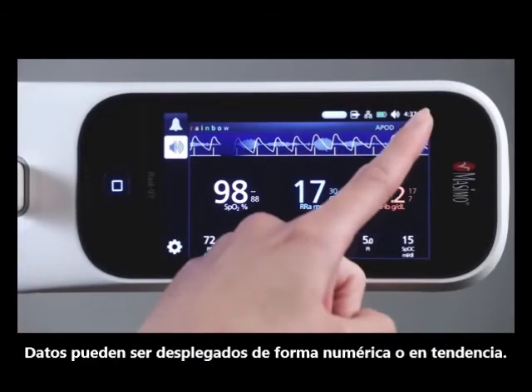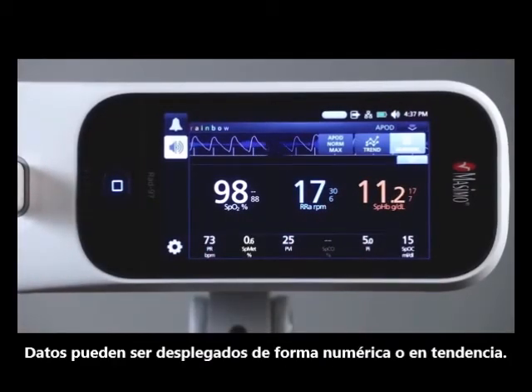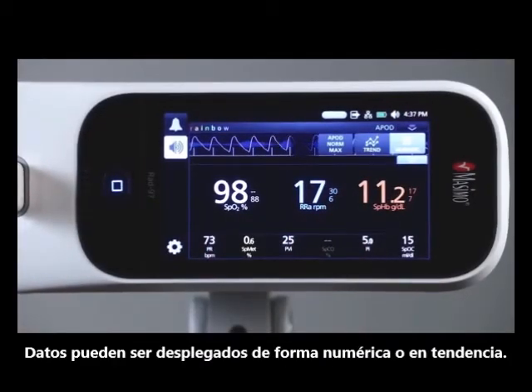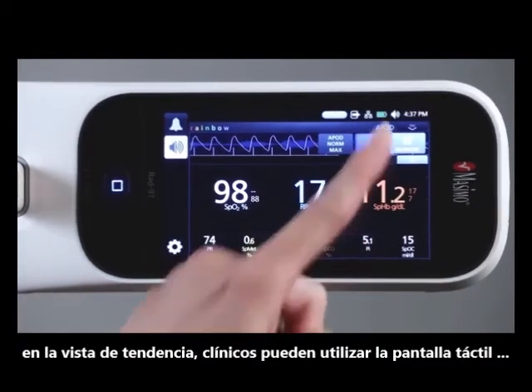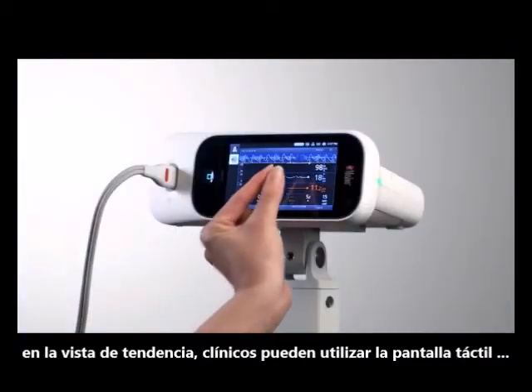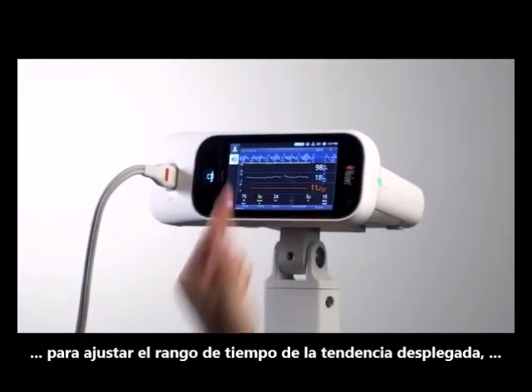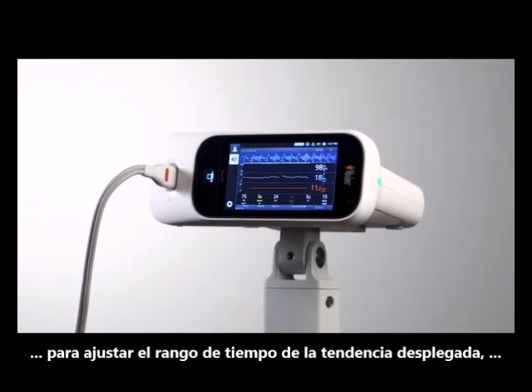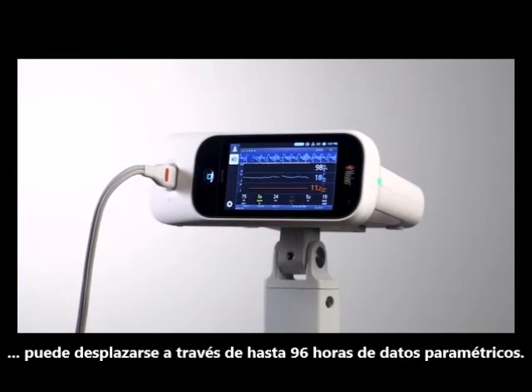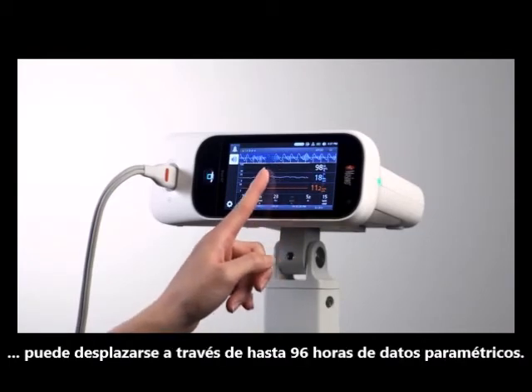Data can be displayed in either Numeric View or Trend View. In Trend View, clinicians can use the multi-touch screen to adjust the range of trend time displayed and scroll through up to 96 hours of parametric data.